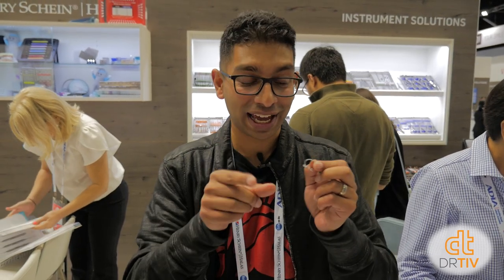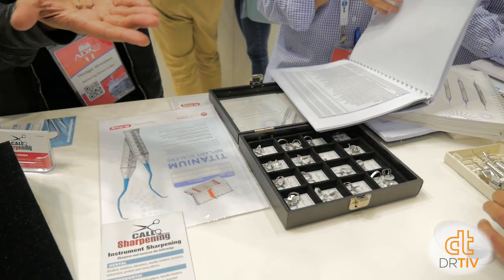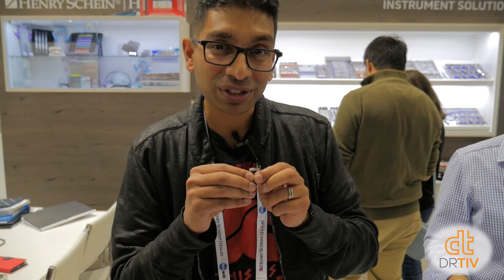You should be using rubber dam. Now there's a new type of clamp called the black line clamp — they look absolutely beautiful in photos, only $3 more than normal clamps, and they look perfect. The trouble is, someone has come to this trade show and stolen all the black line clamp display samples. Bring them back! For the rest of you: normal clamps are about $29-30, and $3 more for the black line ones. They really do look awesome.